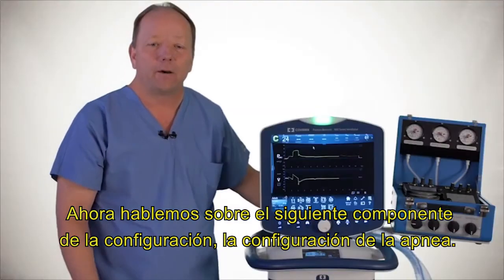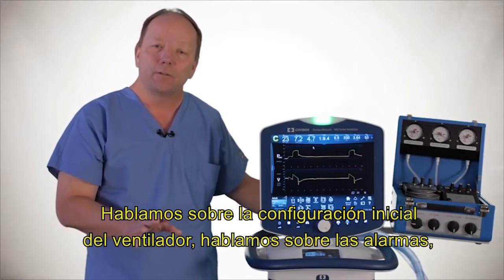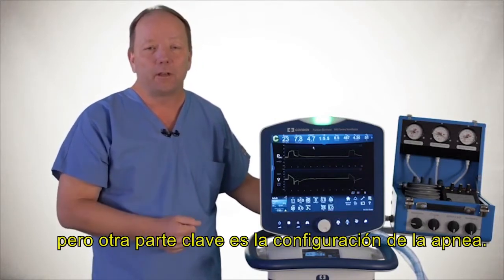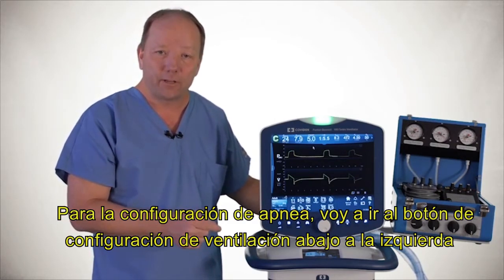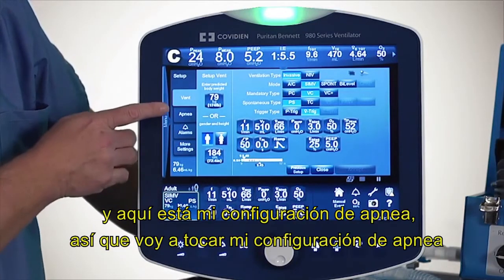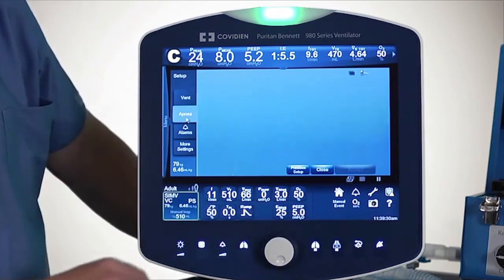And now let's talk about the next component of setting the apnea settings. So we talked about initial ventilator settings. We talked about alarms, but another key part is the apnea settings. So to access the apnea settings, I'm going to go under the vent setup button on the lower left-hand side again. And right here is my apnea settings. So I'm going to touch my apnea settings.